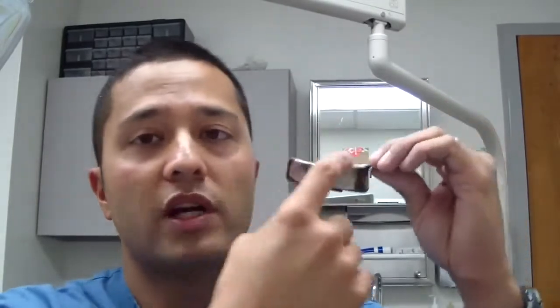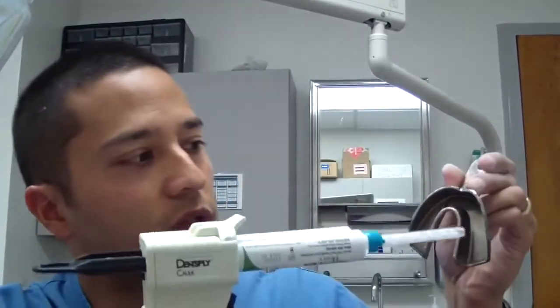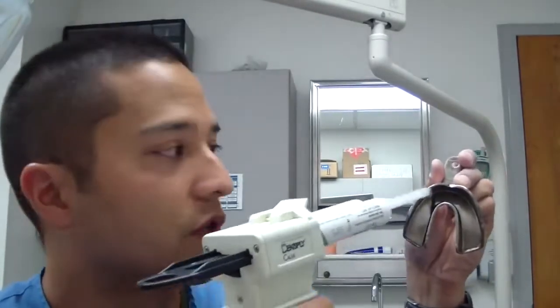So that being said, we put the adhesive on here — pretend we've fast forwarded to ten minutes. Now, if your dental assistant is going to be taking heavy body, whether it be here or in one of those fancy mixing machines, get them to — if you're taking a final impression, say for a first right molar around here — take the impression material and fill up the tray. Get them to start by squirting some out first, making sure the unmixed stuff is discarded.